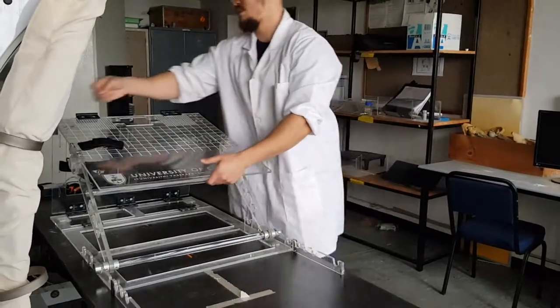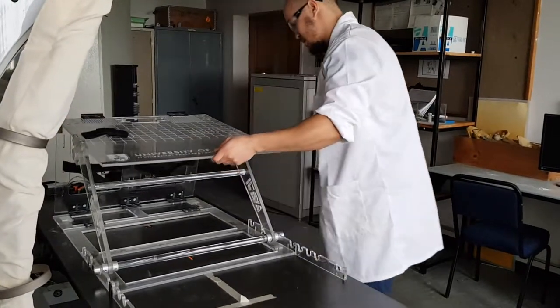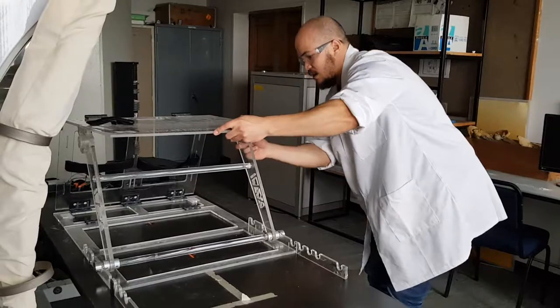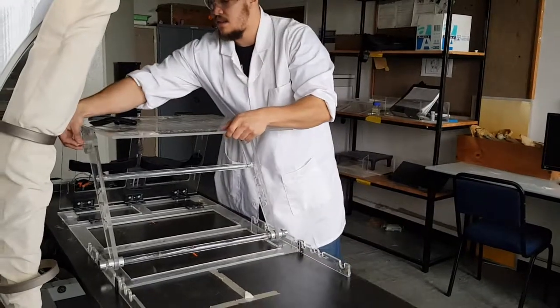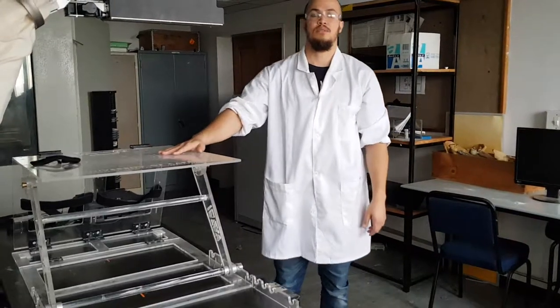From there, take your pins, remove them and then pop them in the slots that allow the lower leg support panel to be parallel with the ground.